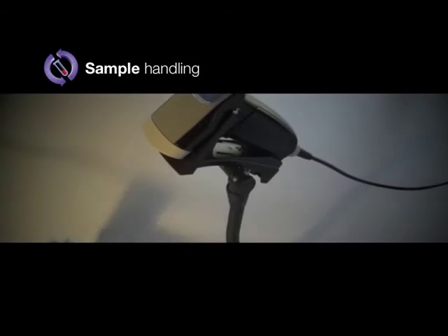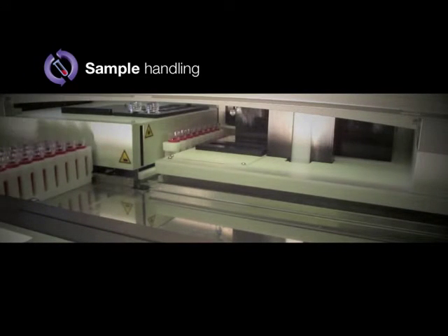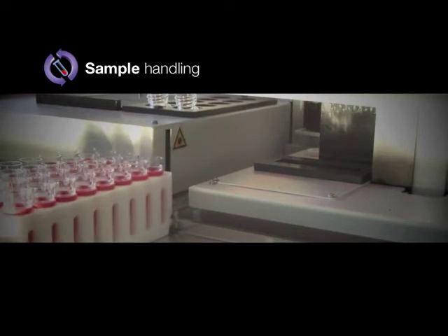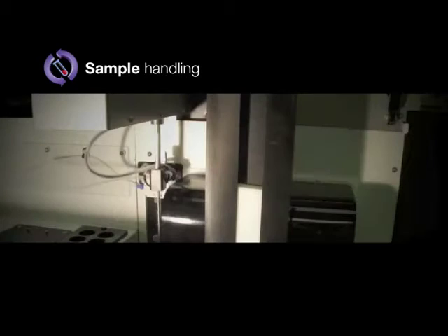We have designed our sample handling software to be simple to use, efficient and versatile, highly automated, intelligent, flexible and effective. The integrated barcode reader ensures complete electronic audit trail and accountability, from sample identification to delivery of patient results.